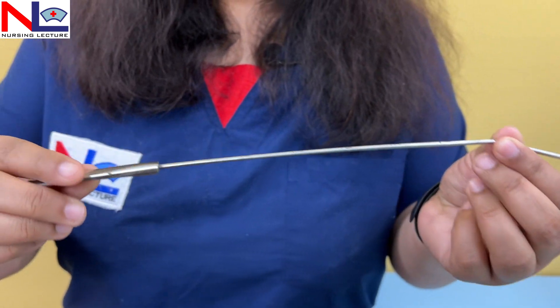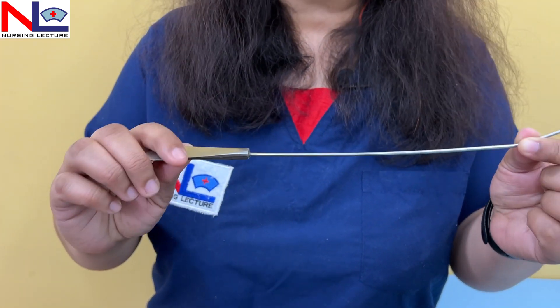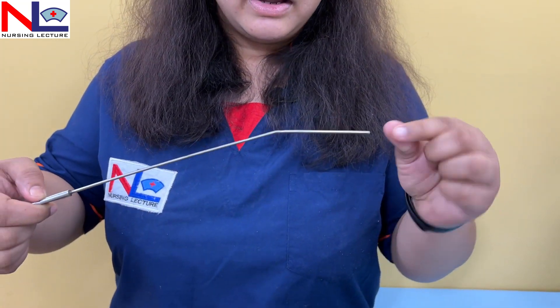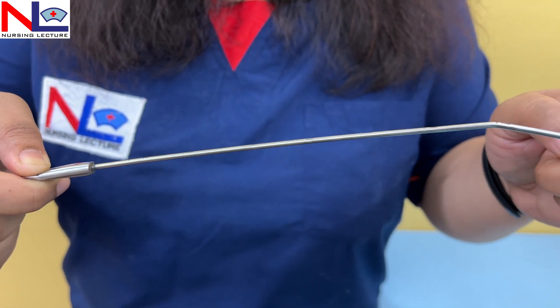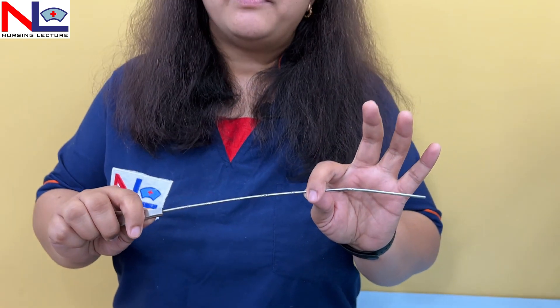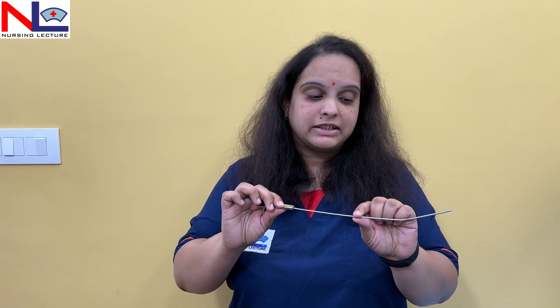The uterine sound is mainly used to identify the utero-cervical length. When we introduce it into the uterine cavity and withdraw it, some secretion and bloody discharge will be present on it. Up to the level where the bloody and fluid secretions are present, we can read the markings to calculate the uterine and cervical length. The second important use is to determine the position of the uterus. The normal position is anteverted, where there is an angle at the level of the cervix.